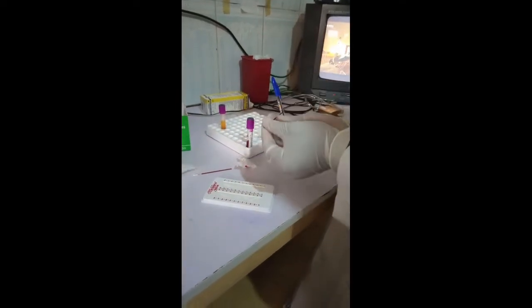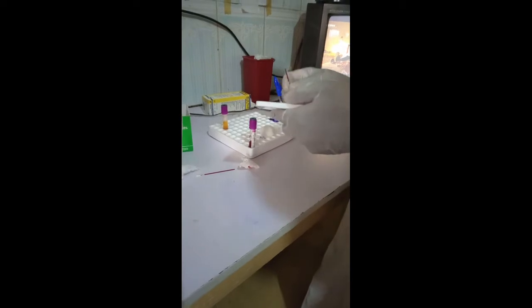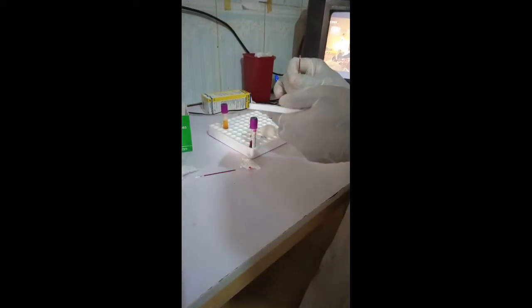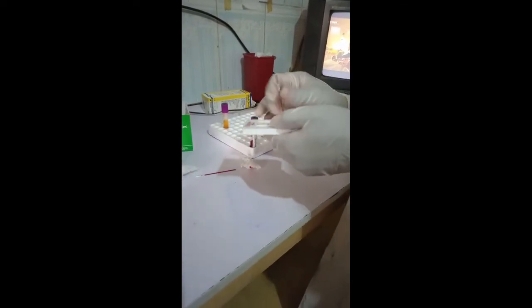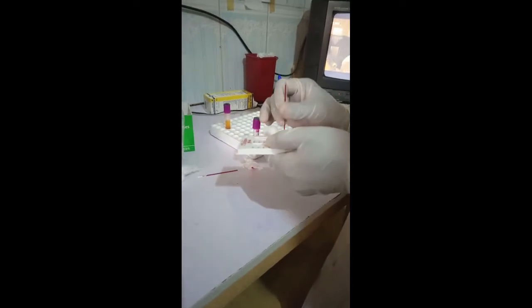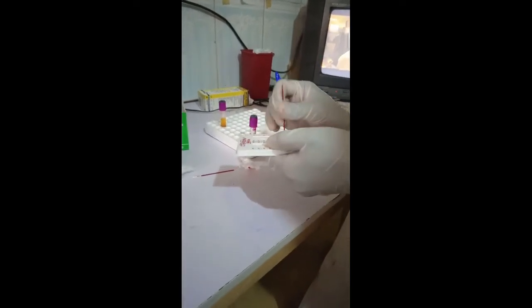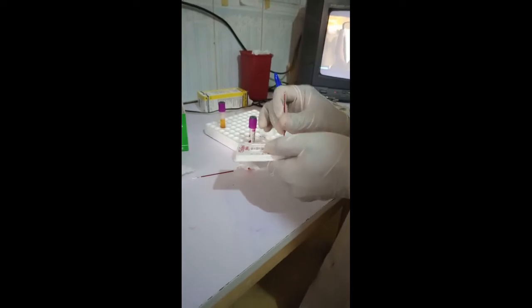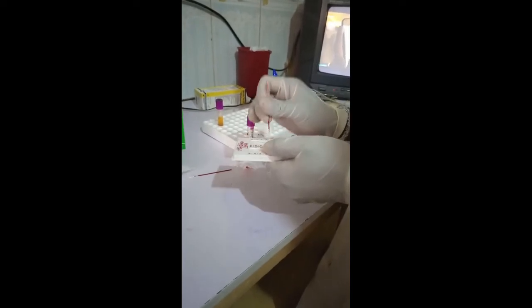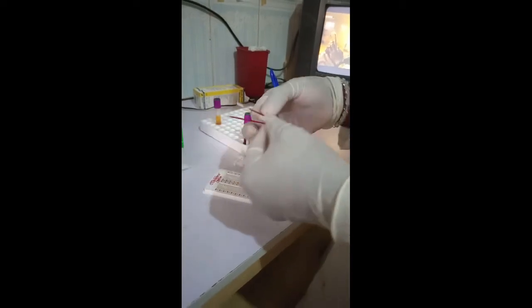So we will seal this one as well using the same method. Pin and rotate. You can see that our tubes have been filled and they have been sealed as well.